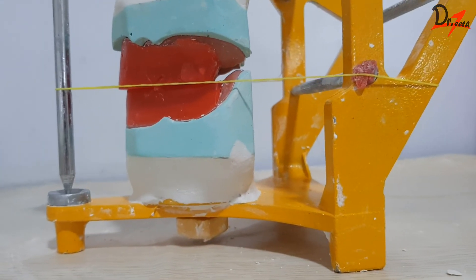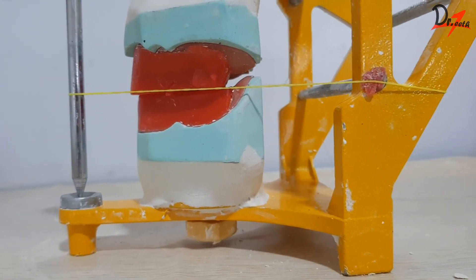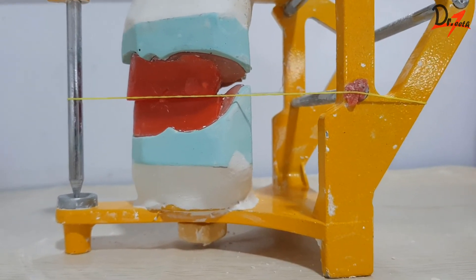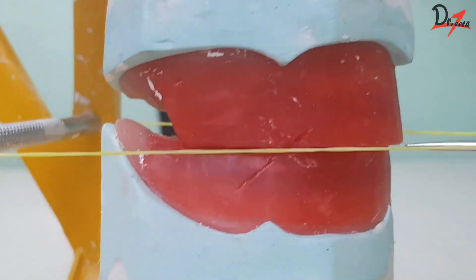Now, we will again check the thread relation. This time, I'm using a rubber band and check from all the sides. Also, check the central pin. Seems like we are done.